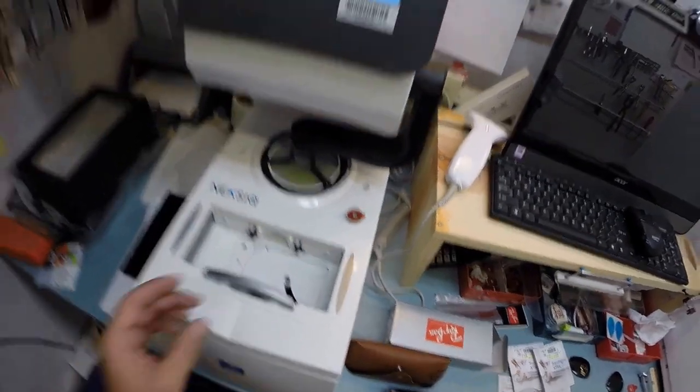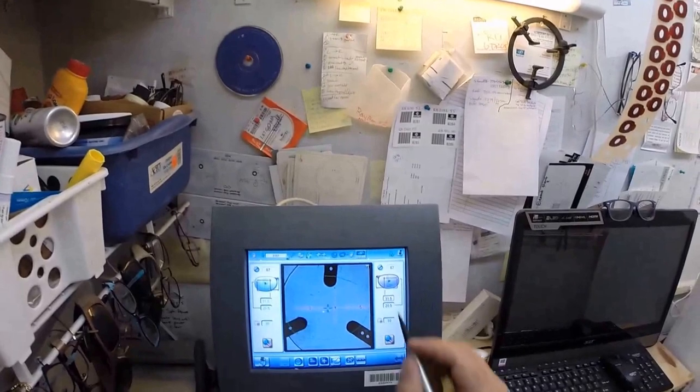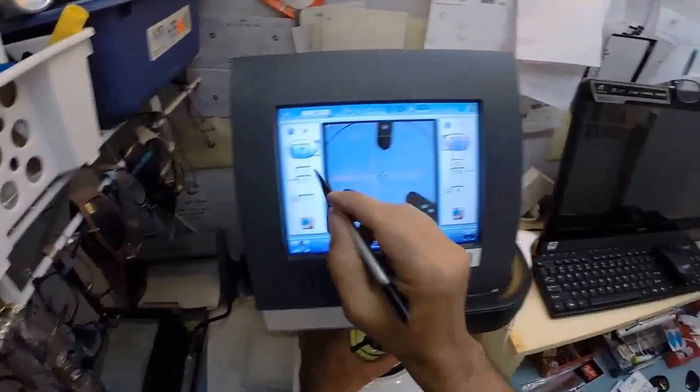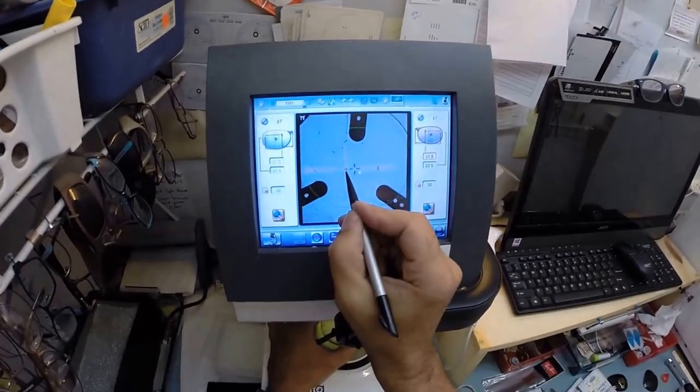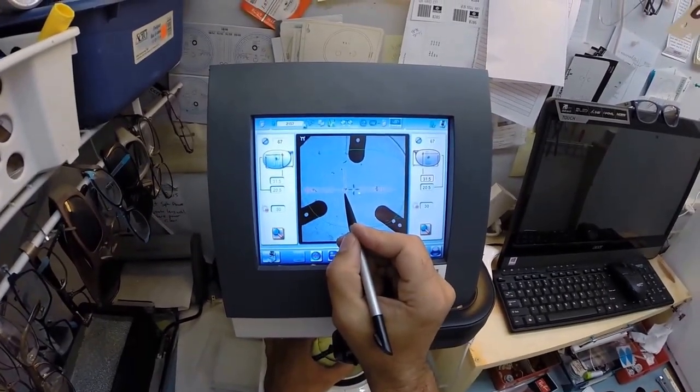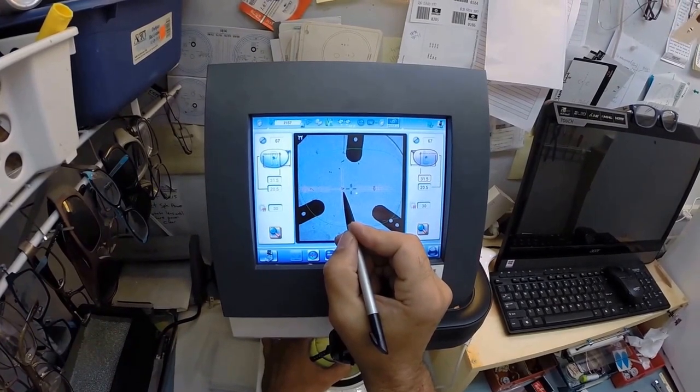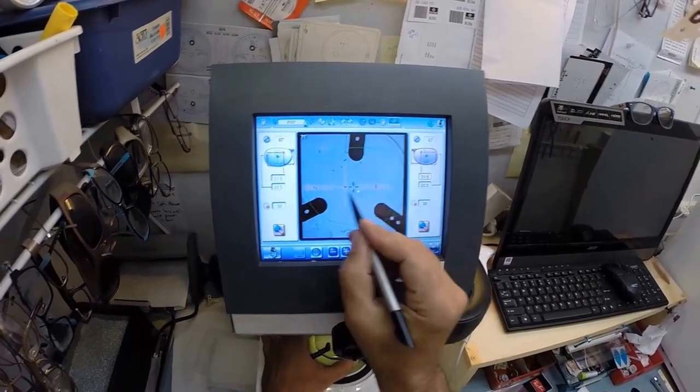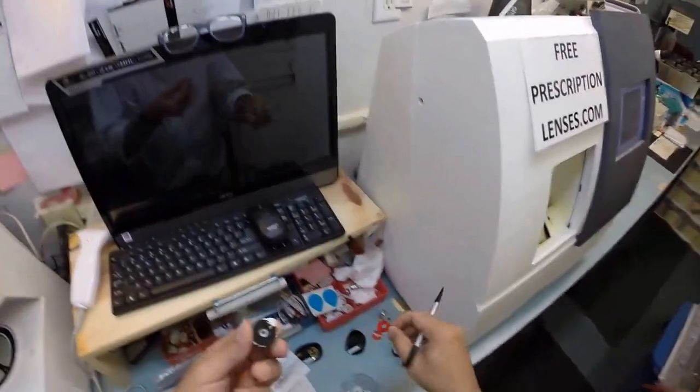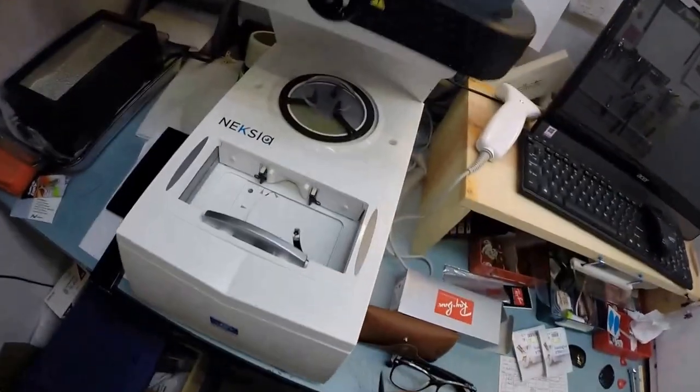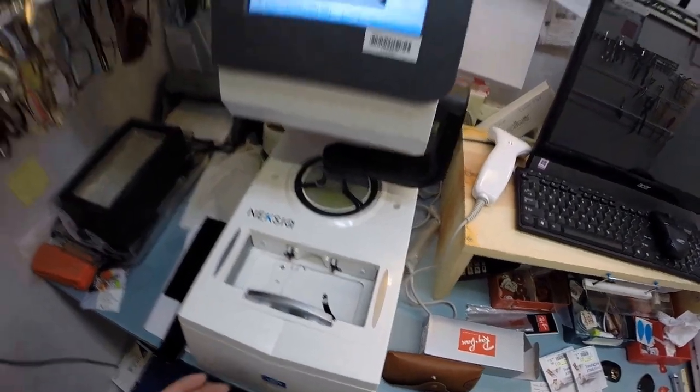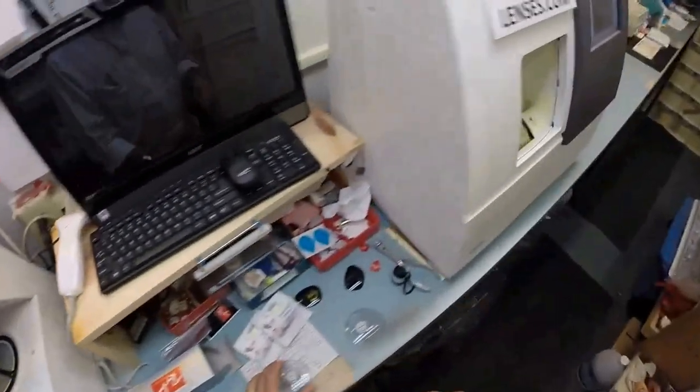The geometric center of your frame is that blue cross. If you were to measure vertically and horizontally, that blue cross is dead center of your frame. Your eyes are just inset from there. That dot right there is your optical center. I'm going to place it inside that orange cross, and then these other two dots I'm going to line up. That tells me it's oriented in there just perfectly. I'm gonna hit that button and now the block is applied to your right lens. Let's do the same thing now for the left lens. Place this, which mirrors over and mimics what I had on the right side - 31.5. Put that black down in the center. Grab the second block, pull the paper off, put the magnet in its place, hit the button, and now the block is applied to your left lens.